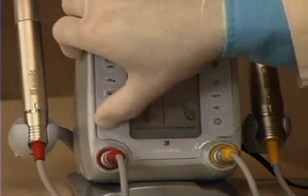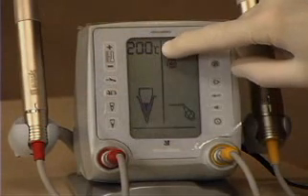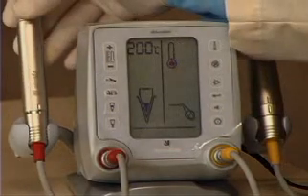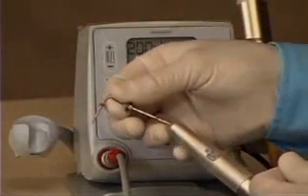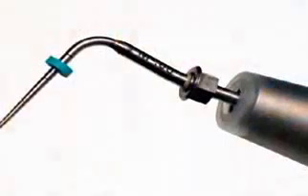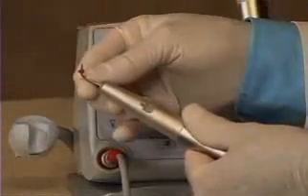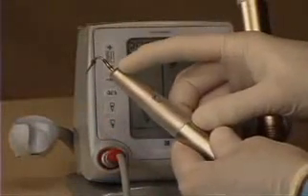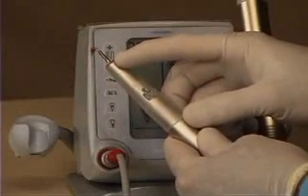The one I use the most is the lowest button — high-temperature down packing — with a default setting of 200 degrees C. Once we set the proper System B heat setting, pluggers fit into the end and the hexagonal nut locks the plugger in the direction we desire relative to the switching unit. You can orient it one way for an upper tooth, another way for a lower tooth. Importantly, we no longer have to tighten a collet, which saves a lot of time when down packing multiple-rooted teeth.